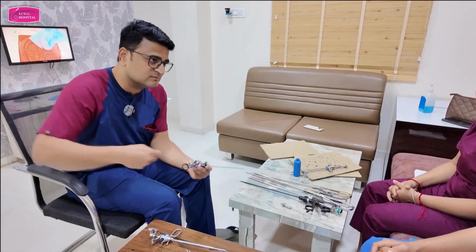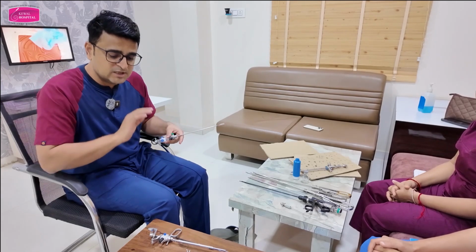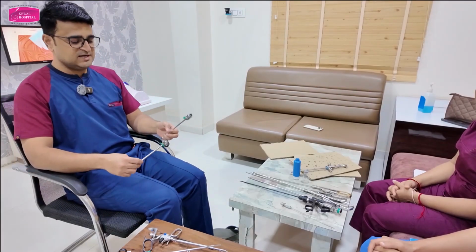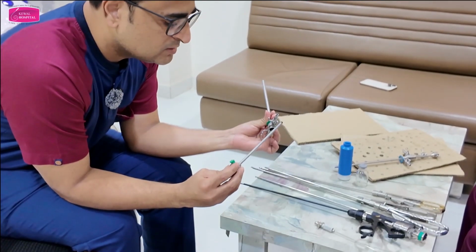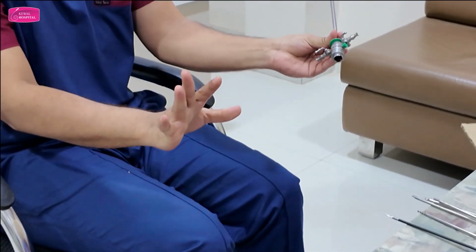Many people have the problem. What happens if you don't insert the scope at this stage, what many people do, this is the inner sheath, this is the outer sheath, right? So you insert, this is easy now. Now I think you have understood. Can you see this arrow? Yes. Can you see the arrow on this? Yes. So just engage, press this, this is locked.